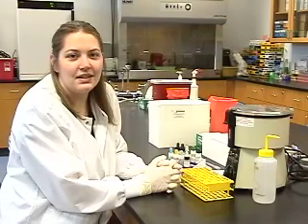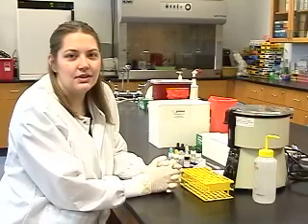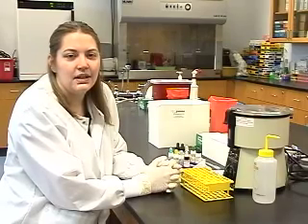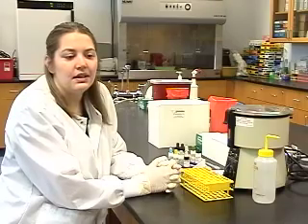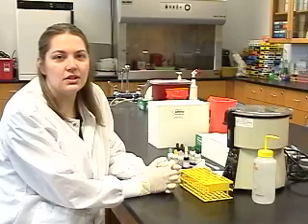ABO and RH typing is the most common task performed in a blood bank laboratory. This is actually 3 little tests combined in one. The first part, the forward type, looks for antigens on the patient's red blood cells. This determines the patient's blood type.